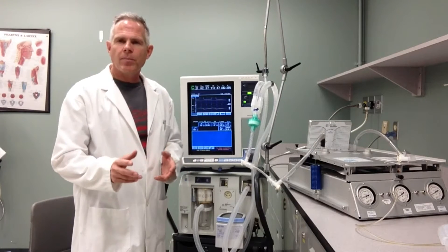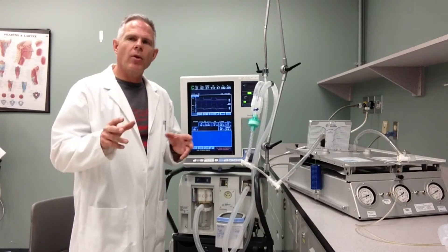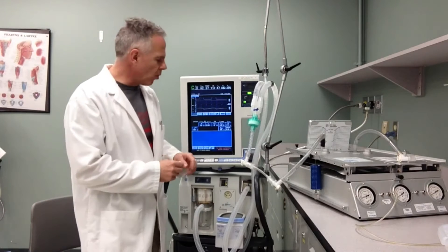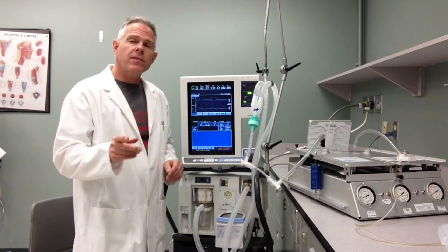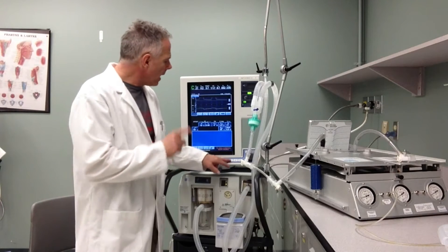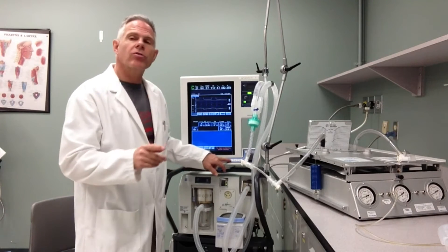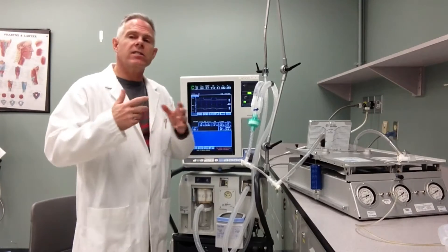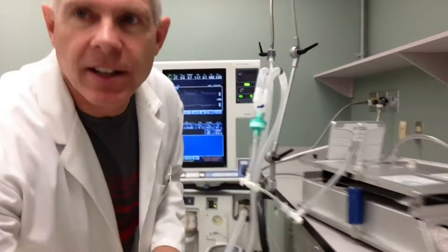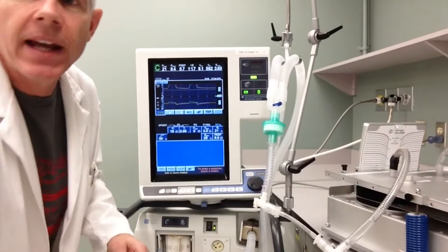Hi, my name is Alan Prost and what I'm going to do for you today is demonstrate the mode of pressure support. Specifically, we're going to look at what happens when we alter the e-sensitivity in pressure support. Come in a little closer and I'm going to demonstrate this for you.